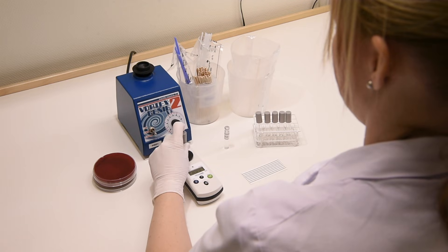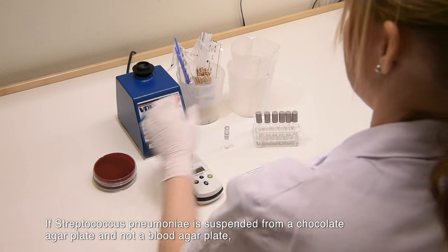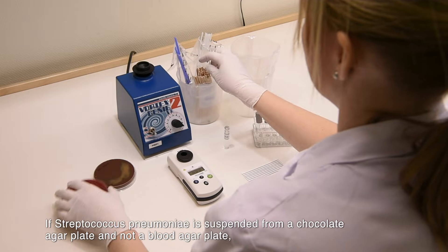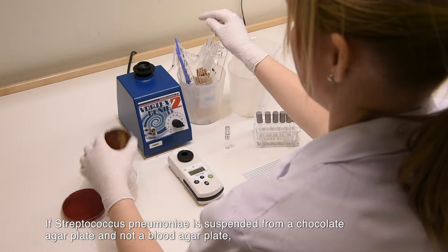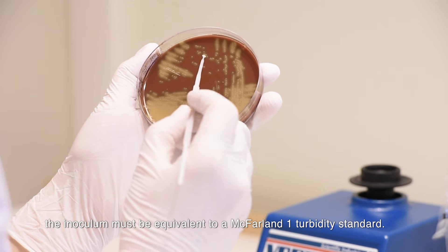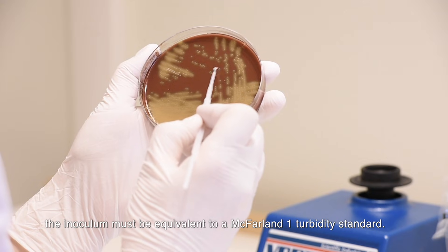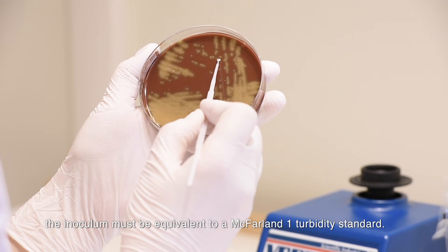If Streptococcus pneumoniae is suspended from a chocolate agar plate and not a blood agar plate, the inoculum must be equivalent to a McFarland 1 turbidity standard.